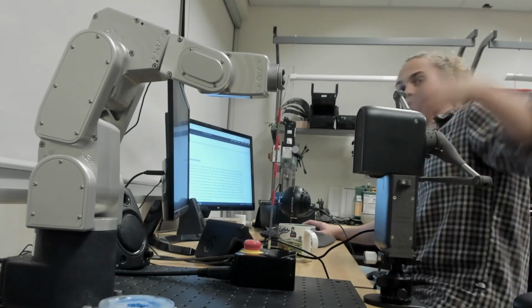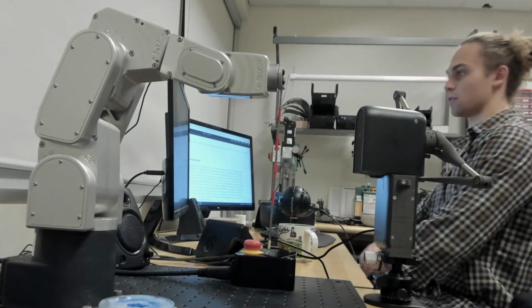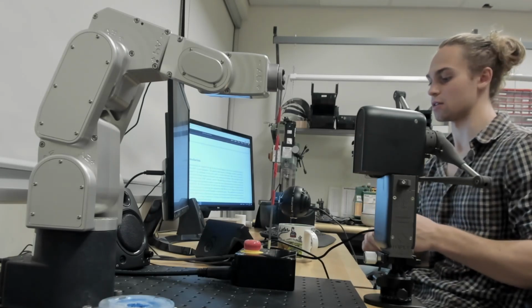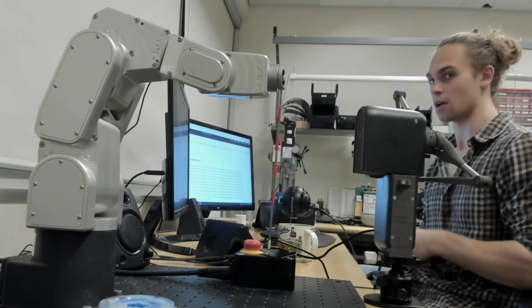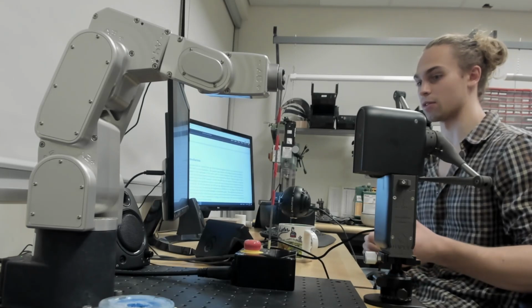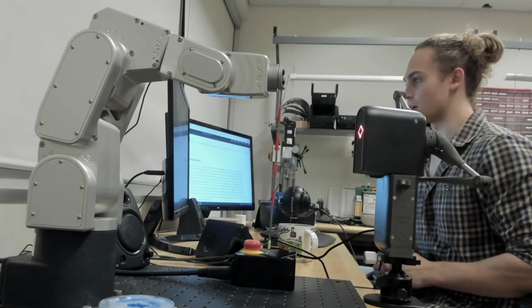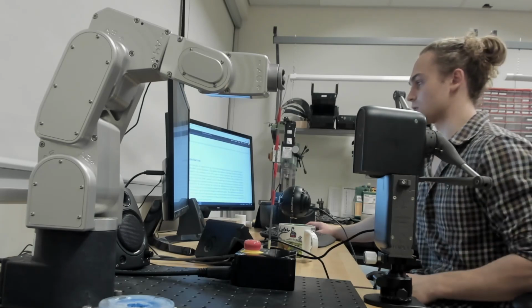And we're going to want this needle to be pointing straight down when it's above a certain threshold. And once we get to that threshold, we want to set the X and Y location as the constraint, and then operate with 6 degrees of freedom relative to that with the needle tip underneath it. And I've taped up the robot there so that you can see it because we've got a lot of gray in the background. So let's get to the activities.